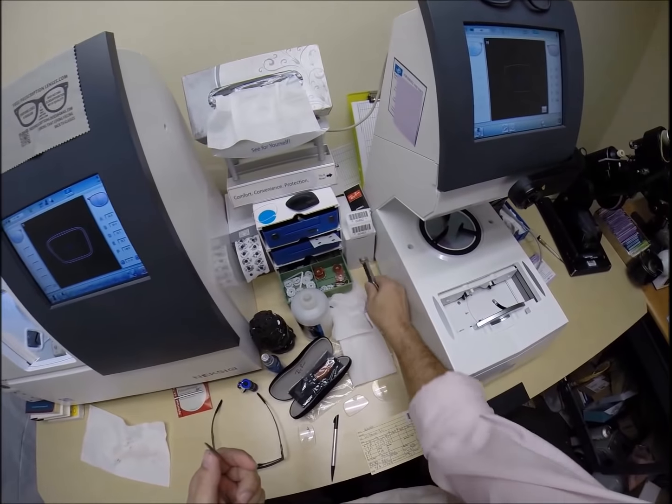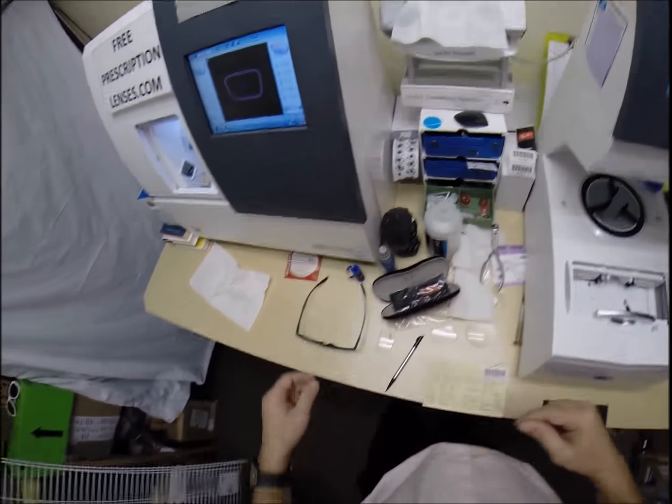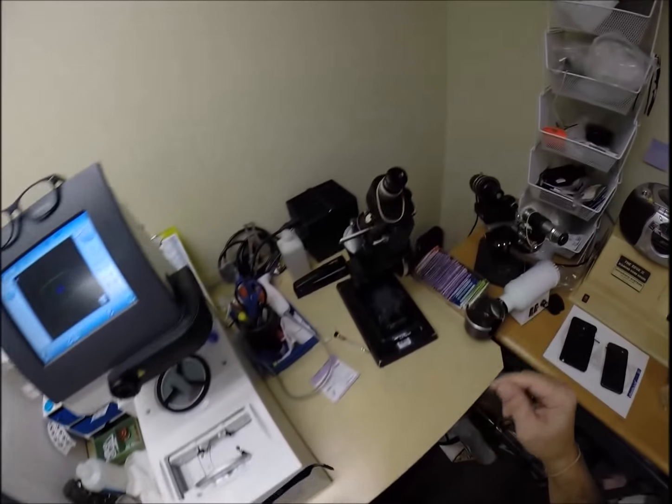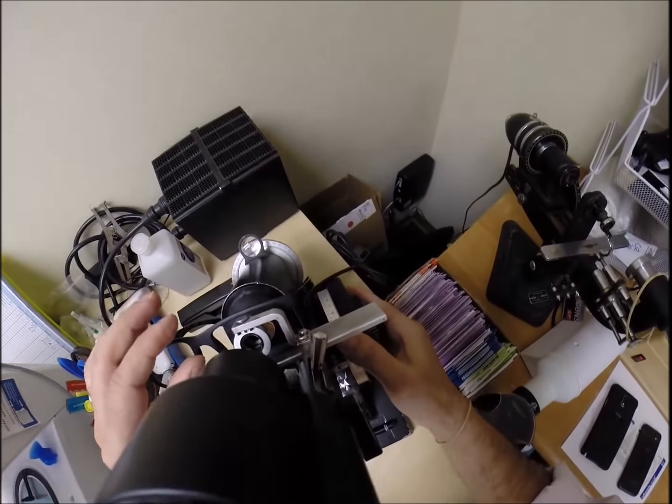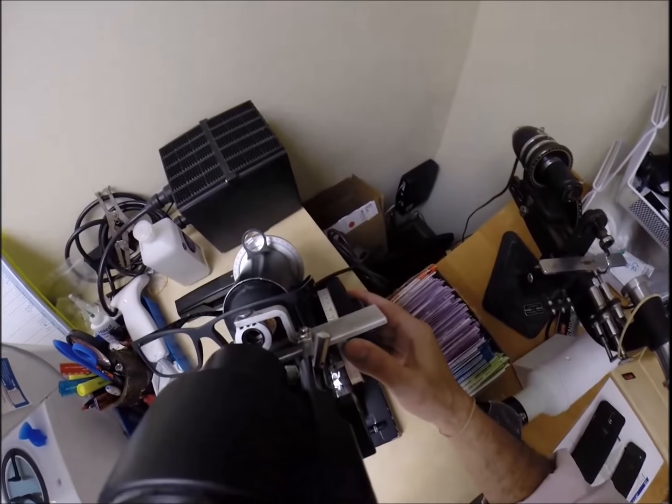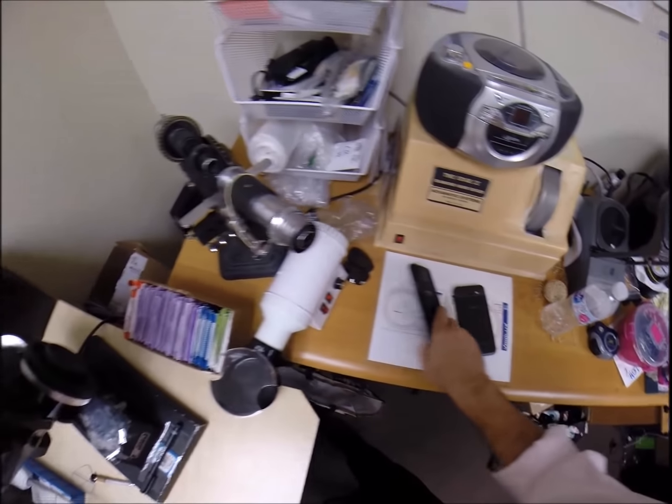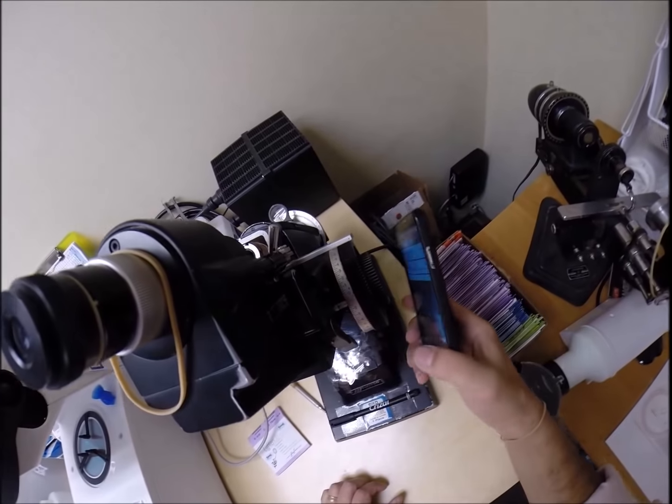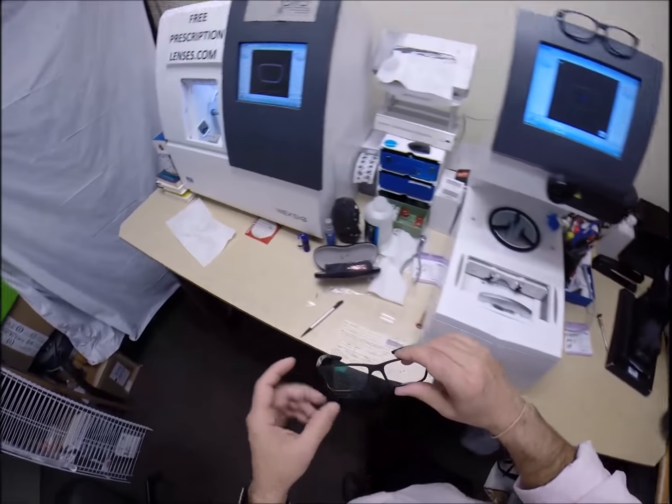Take the block off. Put the sticker... Let's put that one there on top, shall we? Keep it growing. We'll come down here to the lensometer. Put it in above the black dot. Not the smudge mark. Turn the power back. We are at zero plano. We're going to end up at minus one. Can you guys see that right on the mark? It's at minus one. You can take my word for it.